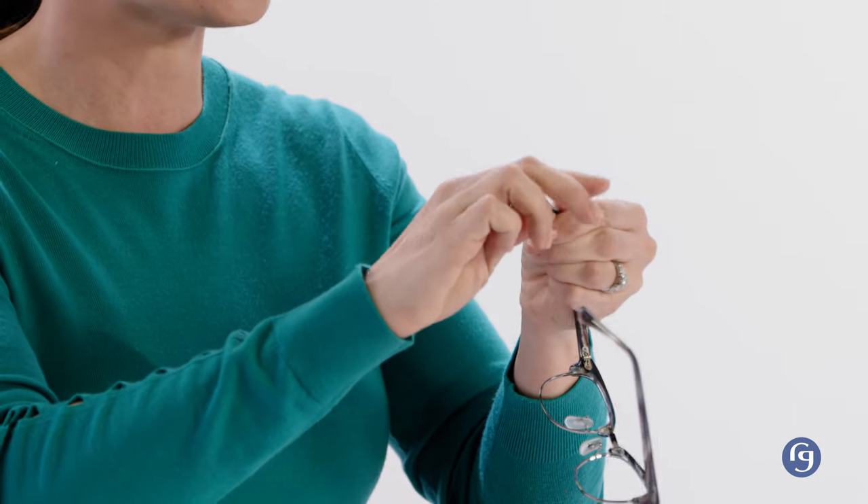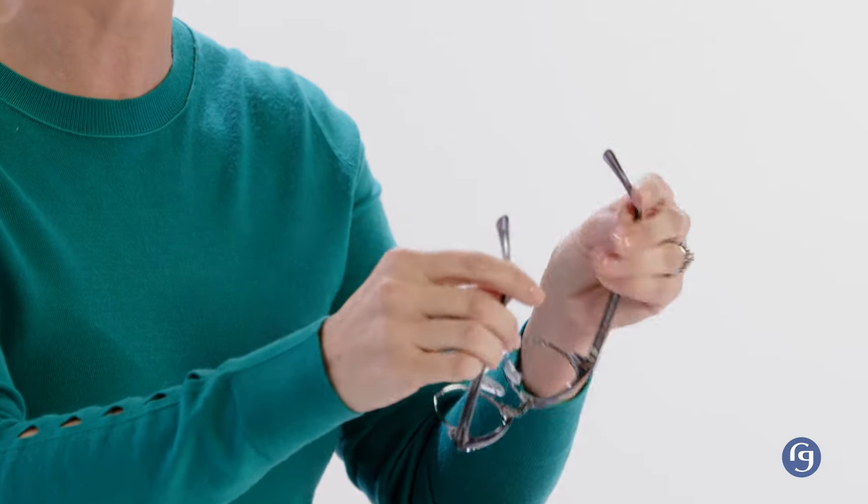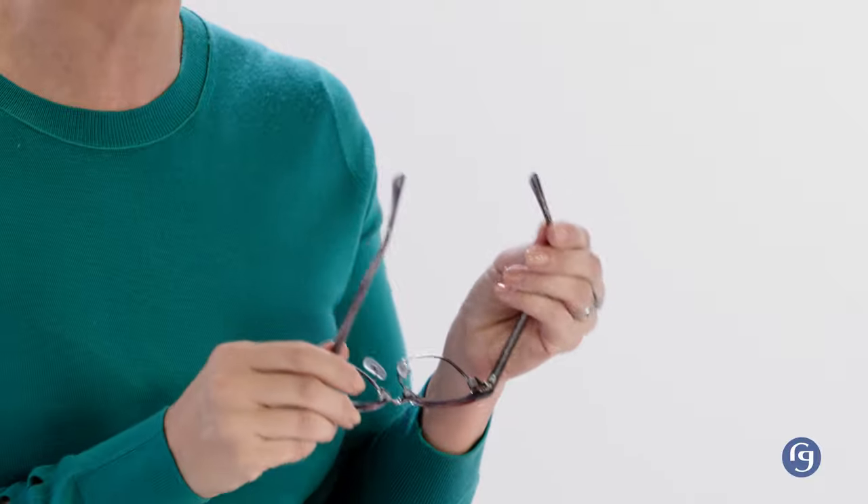When they sit flat right side up or upside down and there's no wobble, you're done. This alignment is ideal for those with perfectly symmetrical faces and ears, and notice when I place them on my face, they're level. But how about those people — like most people, including my husband — who has one ear that's slightly lower or higher than the other, so they kind of sit a little crooked? Simple: grasp the glasses firmly and gently bend the temple on the side that's leaning, in the same direction of the lean. Do this in very small increments, as a tiny adjustment is all that's usually needed.